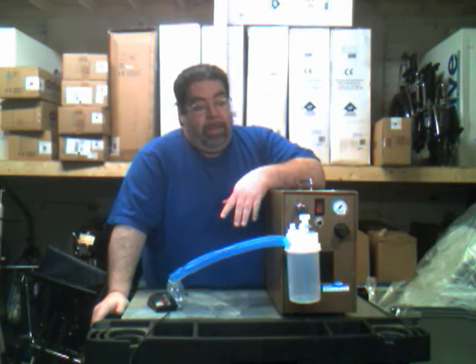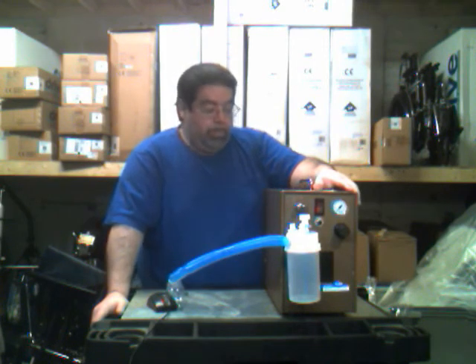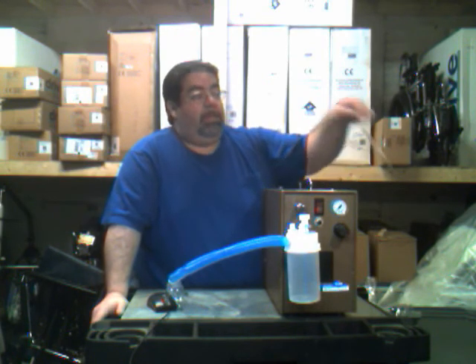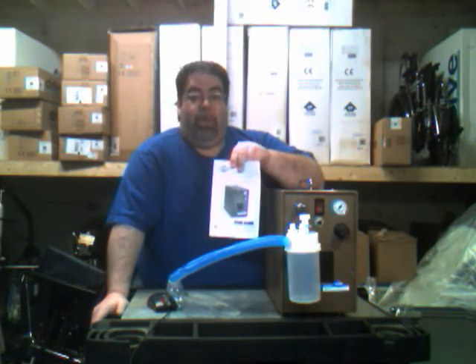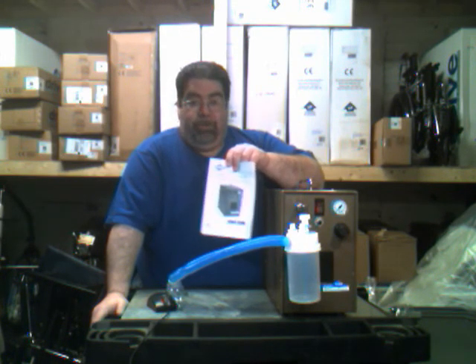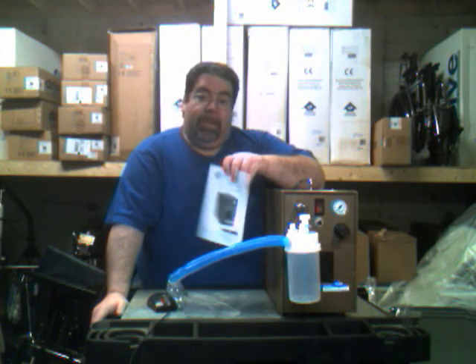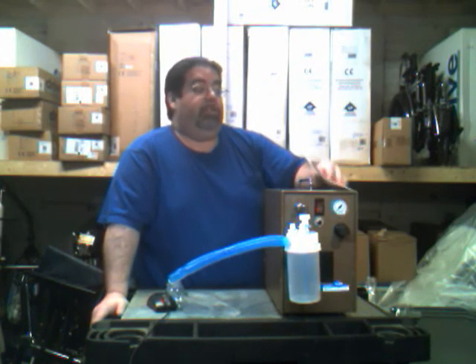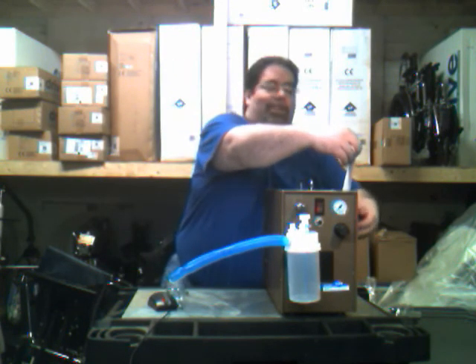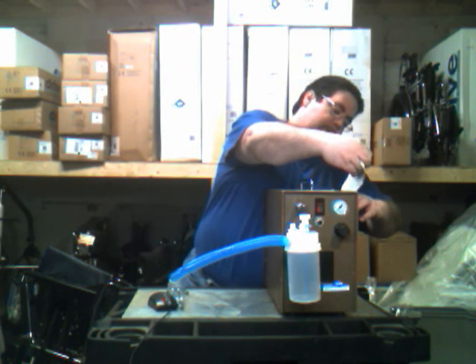There is no other maintenance for the machine other than cleaning the filter and occasionally wiping down the top with a damp cloth. All adjustments and repairs are to be referred to us at Approved Surgical Supplies. Our machines also carry a manual on the side for any further information you may require, and additional information is available upon request. Just give us a call or fax us and we will send you the necessary information. I hope this has helped you understand the 50 PSI compressor and what it's used for.